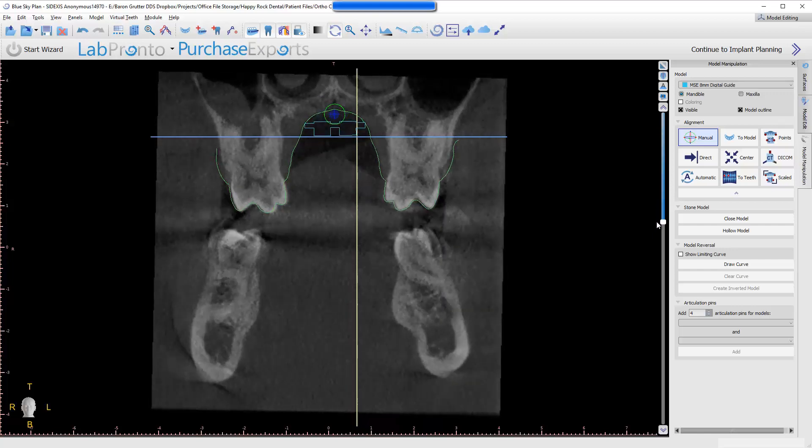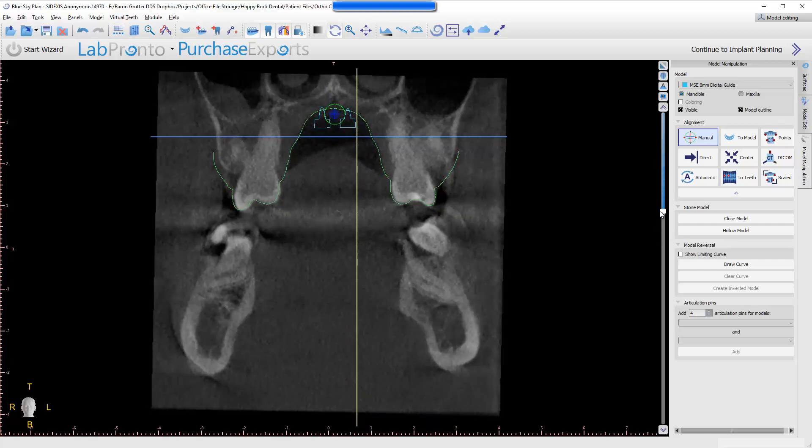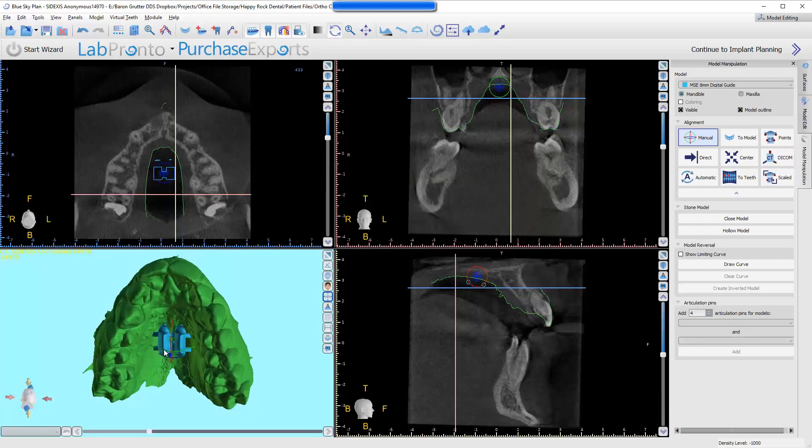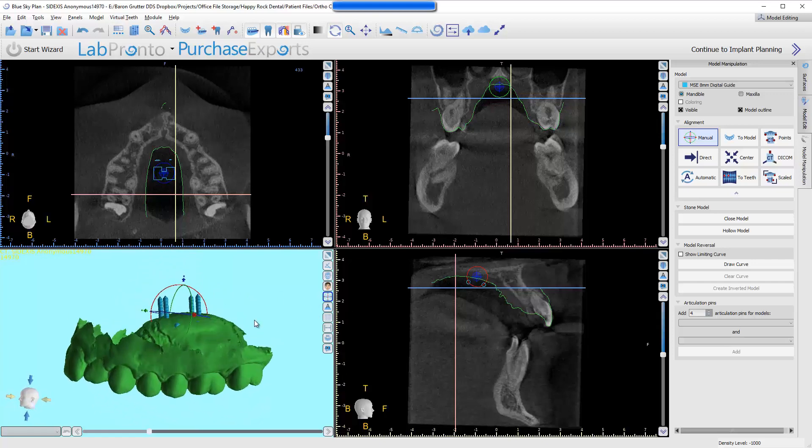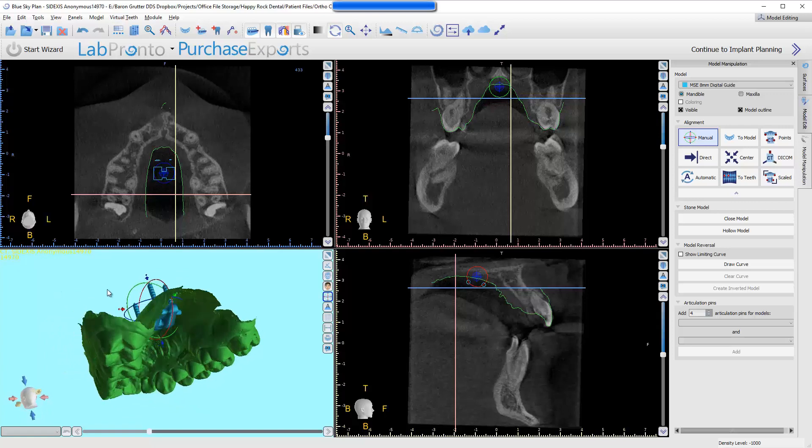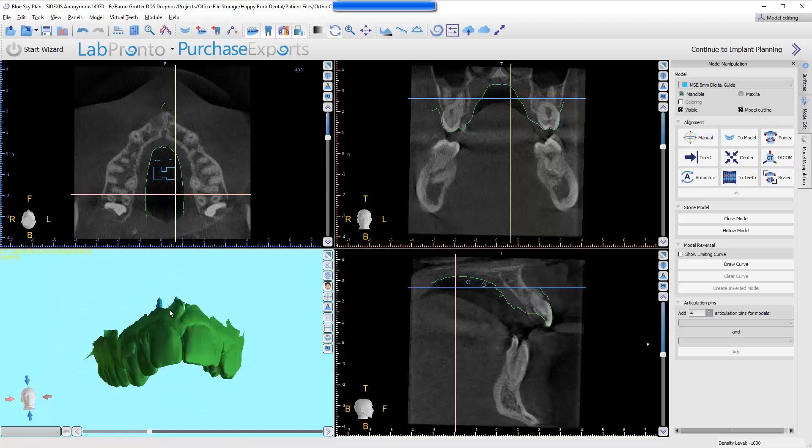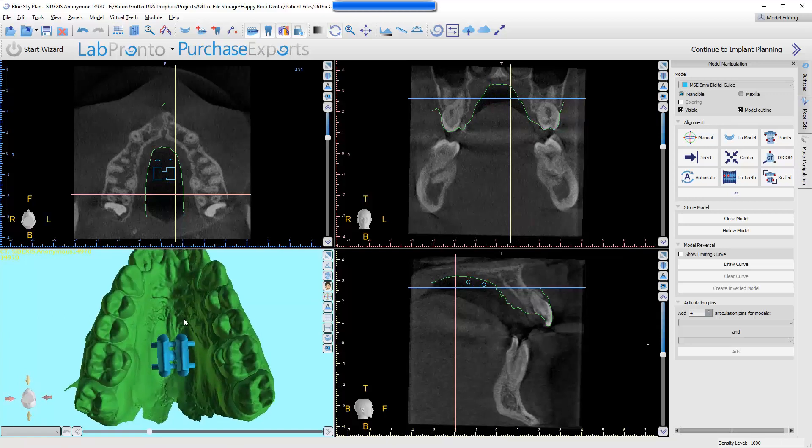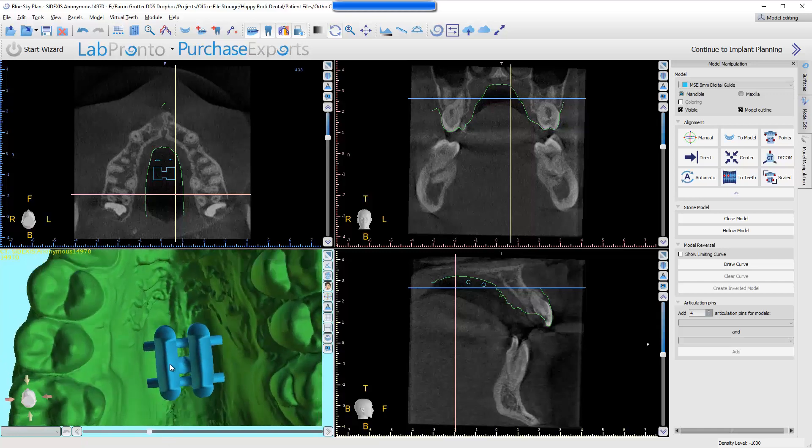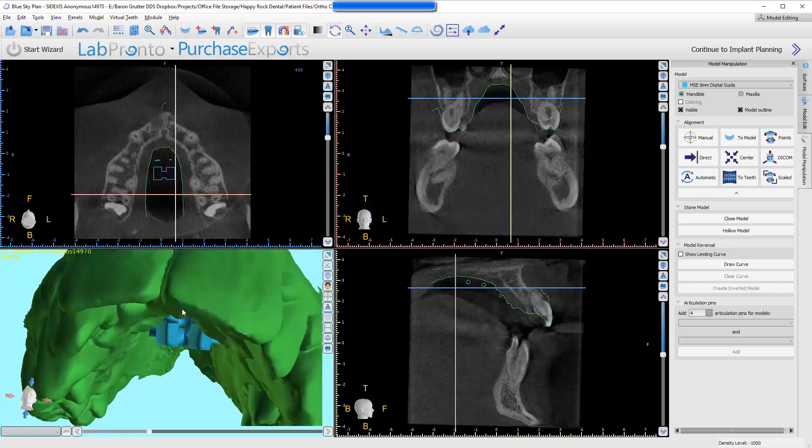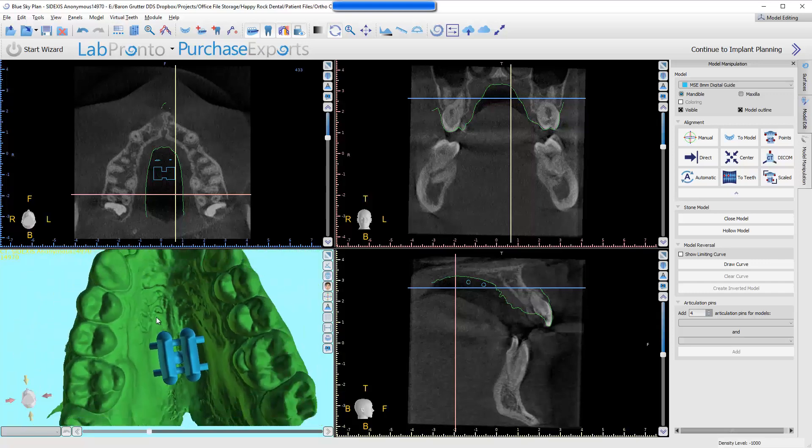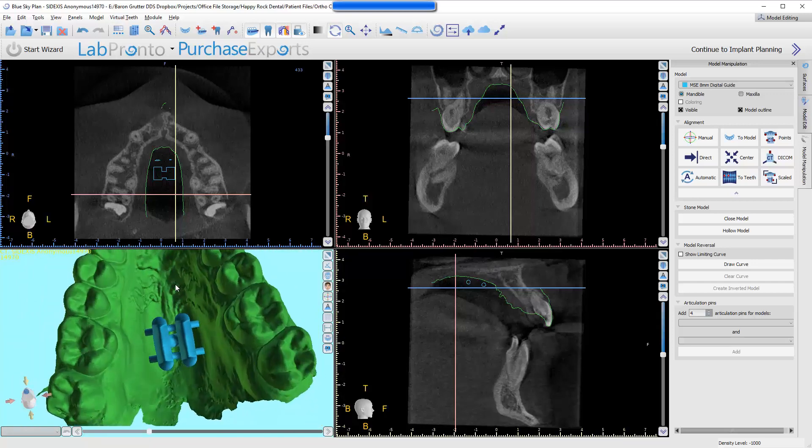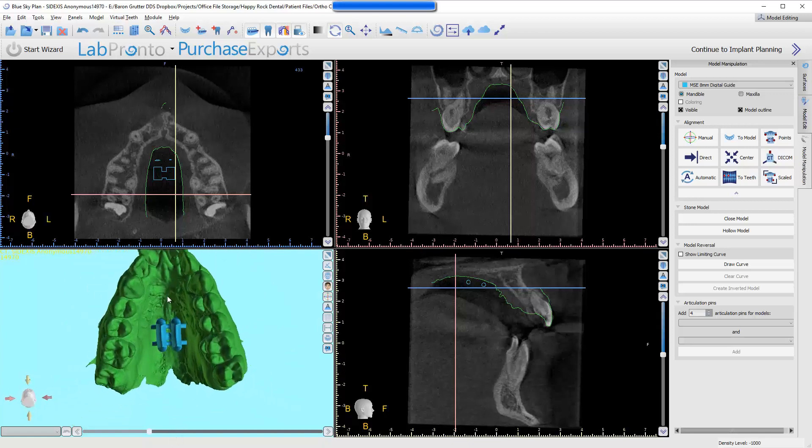Now you know that it's going to fit, and you're good to go. You know exactly where you want it. If the lab that's making this, Igor is using this software, then he could just load this up. Or, we can just export these files, and he can do with it as he wishes. There's ways to actually use this to guide the design of the actual appliance, creating little pins that it would slide over top of, which is up to him if he wants to do it that way. Or, he can just use this as a visual reference, and try to match this to the best of his ability. If he elected to do it, I'm going to show you how that could work. At this point, we're all done. We know we have it where we want.